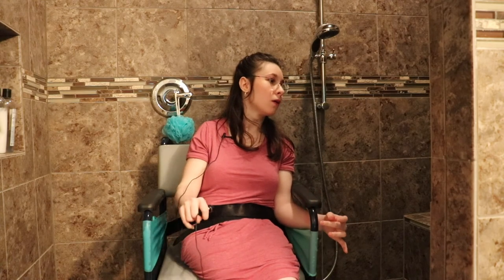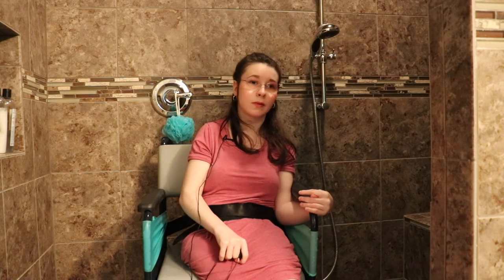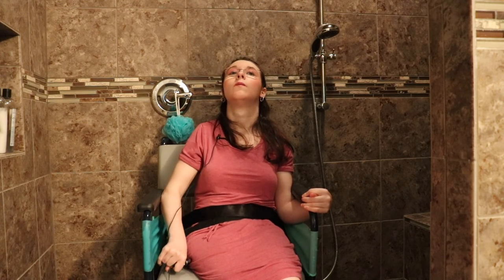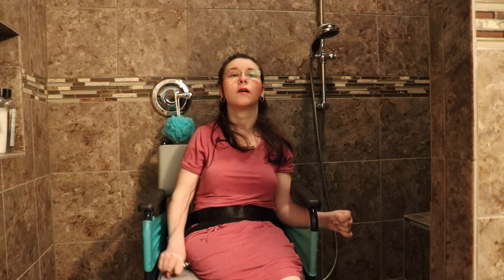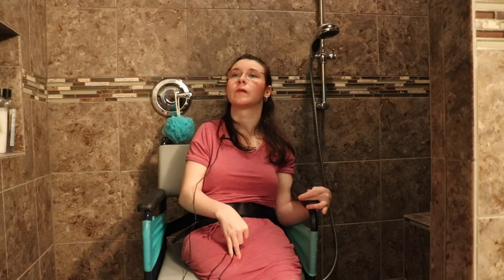The body takes the longest because that's the bigger part of me and it's hard to reach all my body parts like my legs. I do have to say, this shower chair does have a hole — it's almost like a toilet seat — so somebody could bend down and clean my bottom instead of not doing it. But the unfortunate part is the hip guides don't allow you to use that part of it, and they don't have a cutout for the hole to go through.